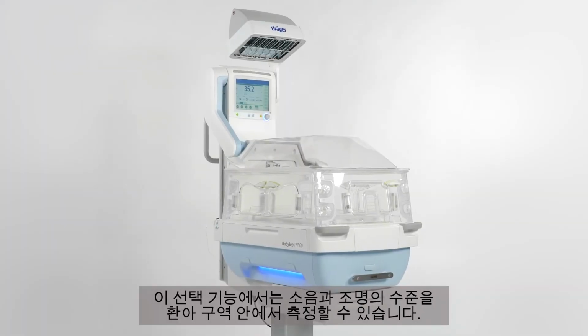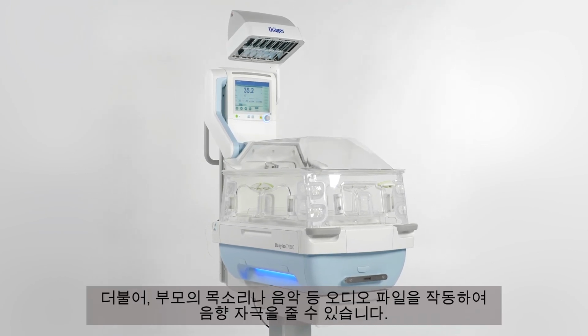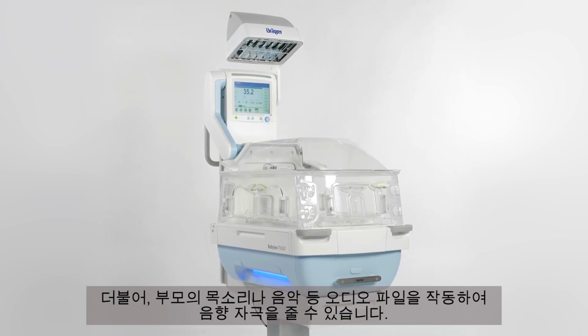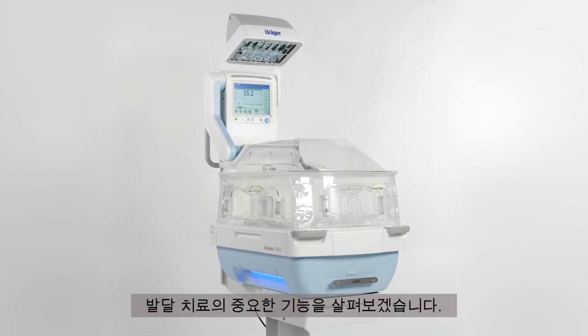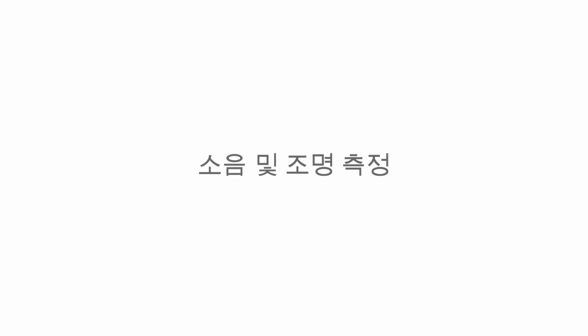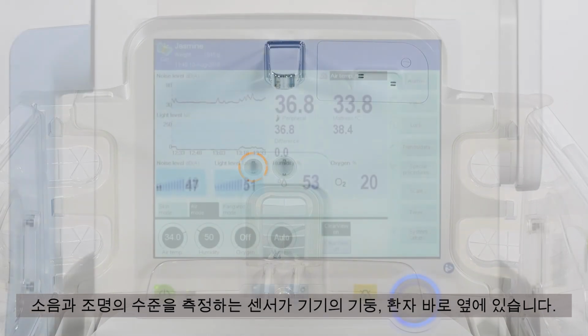With this option, noise and light levels can be measured inside the patient compartment. Additionally, it is possible to provide acoustic stimulation by playing audio files of the parents' voices or music. Let's look at the key features that support developmental care practices. The sensors for measuring both noise level and the light level are located in the sensor wall of the device right next to the patient.